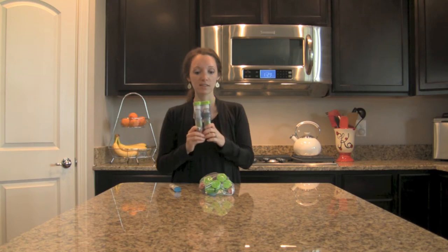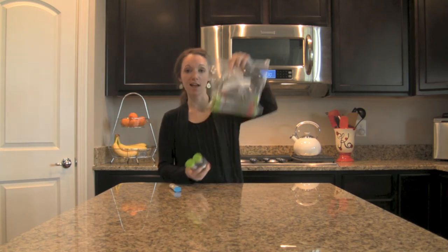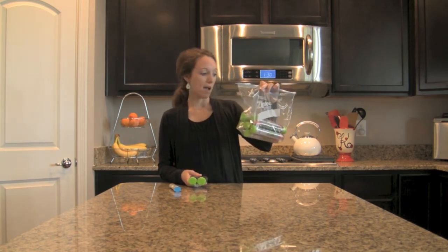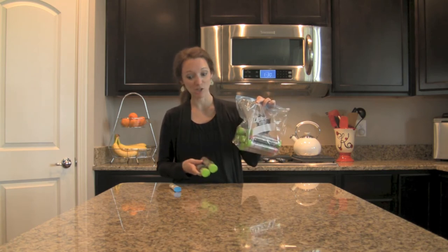Assuming the year has gone well, you may have lots of EpiPens left over every year. You may be thinking, what am I going to do with these? Well, keep them. Here is a bag of what I have left of our expired EpiPens. The reason they are good to keep is they are great for training, which is what I want to talk to you about today.